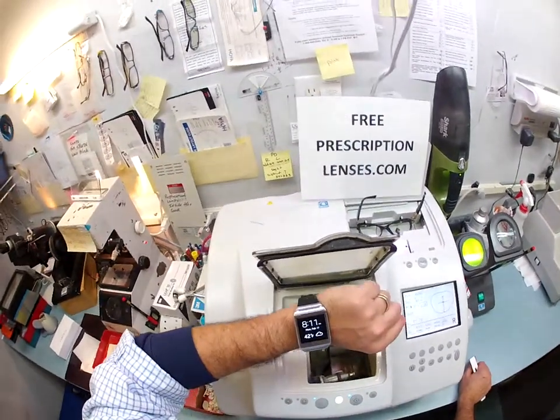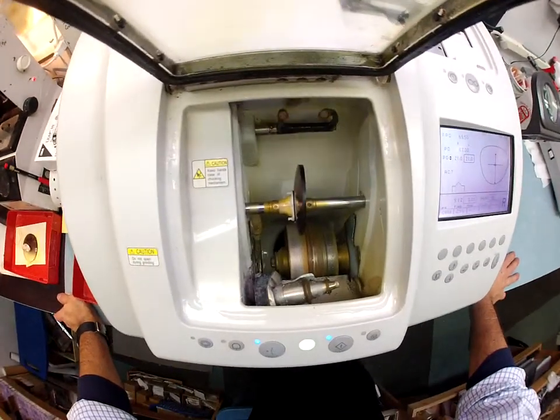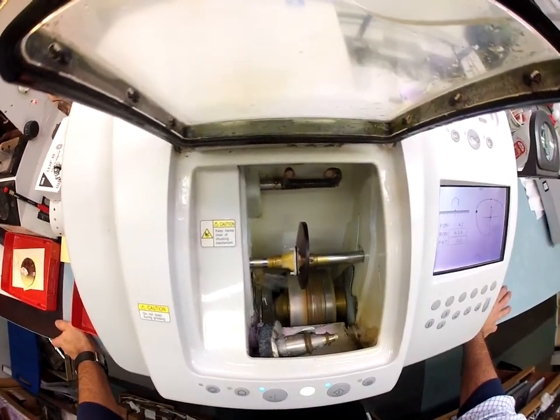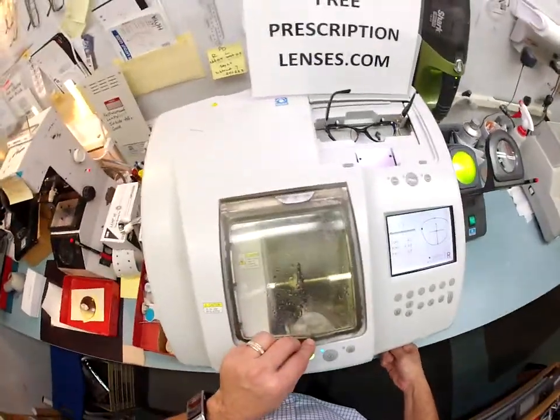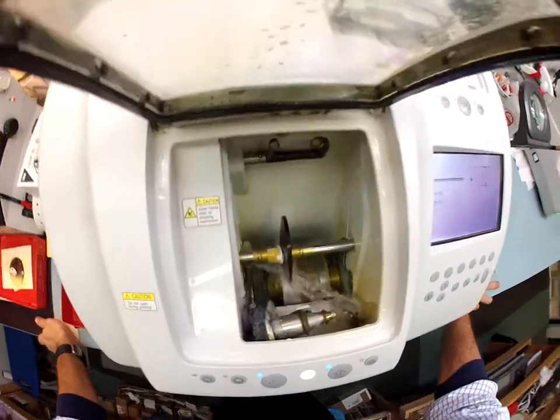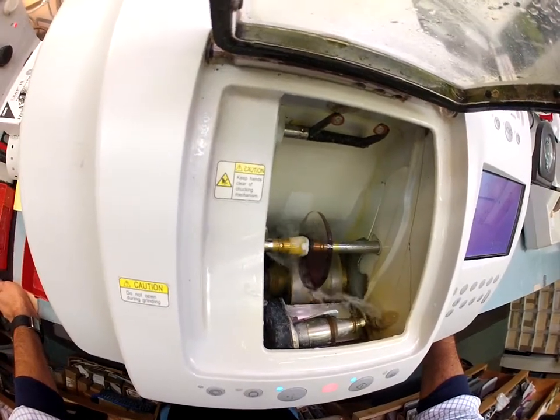This whole process should take about 15 minutes. It's going to get loud in a moment so I'll have to close the door because of the water. Let me turn the water down a little bit so it doesn't splash as bad. It's actually on the cutting wheel now — plastic cuts wet, polycarbonate cuts dry.